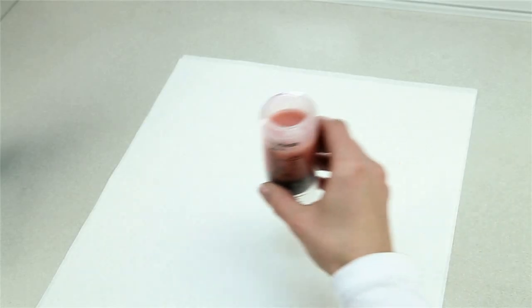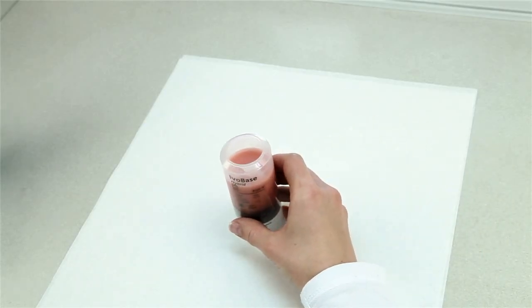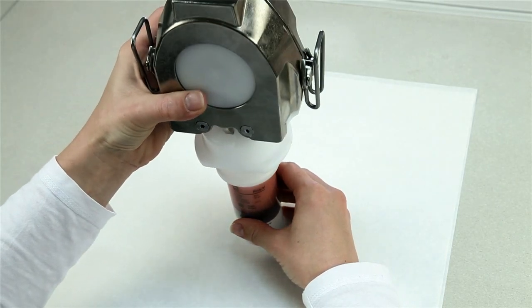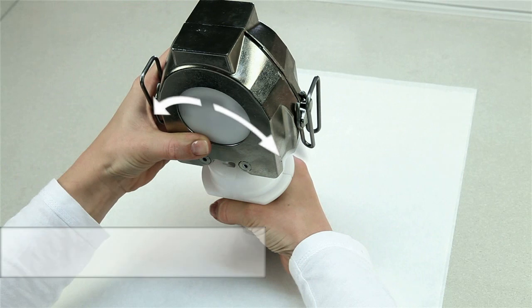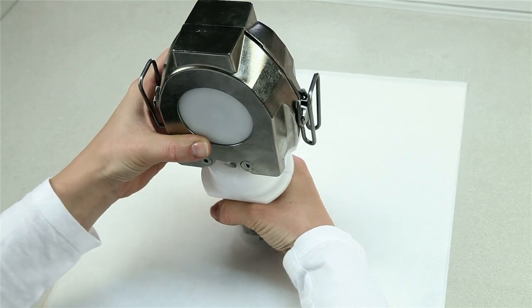Place the open capsule on an even surface. Position the centering insert with the flask on the capsule and press down. Do not tilt the capsule with the flask anymore to prevent the material from flowing out.